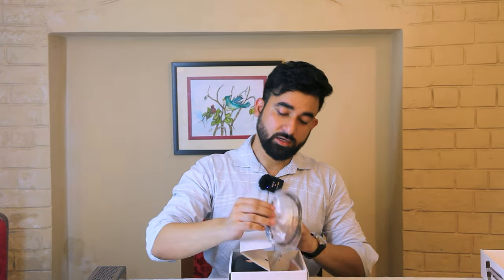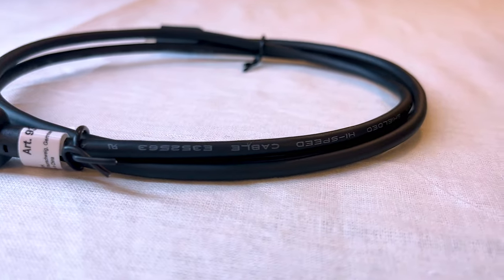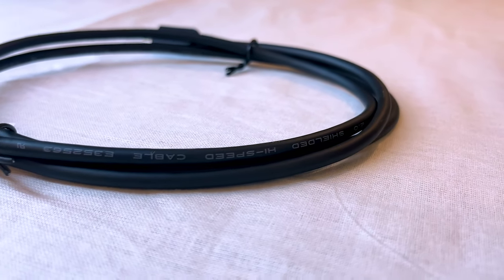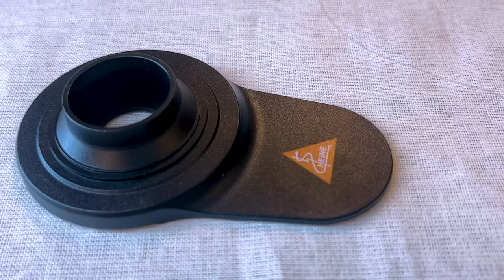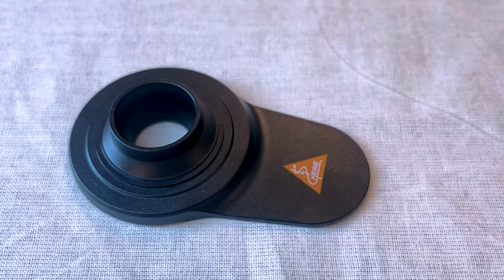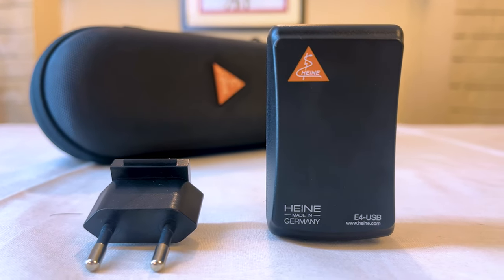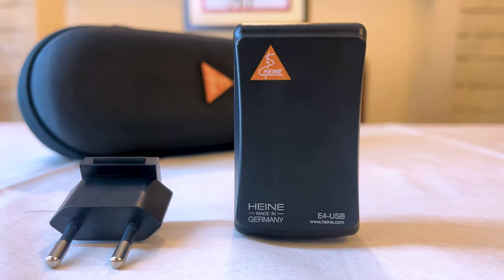First, let's talk about the USB charging cable, which is of superior quality. Next is the universal smartphone connector which you can use to connect your phone with this adapter. It is rated at 0.3 ampere.